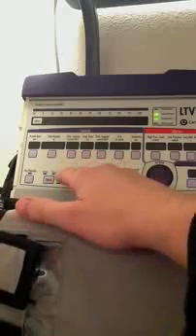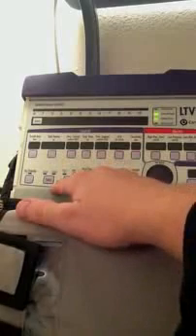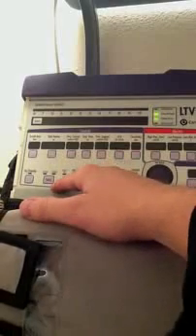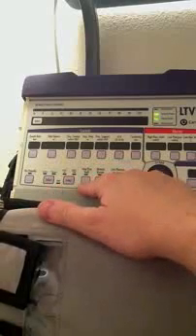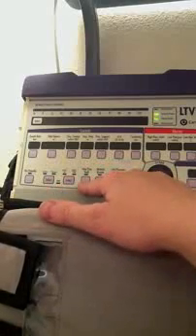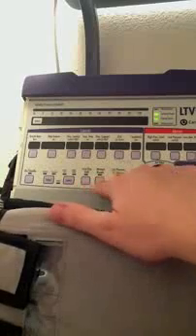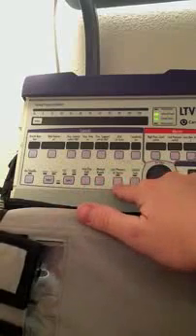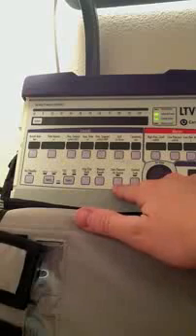This selects between assist control, SIMV/CPAP, and then NIPPV, or non-invasive positive pressure ventilation, which is basically analogous to BiPAP. This is my inspiratory or expiratory hold button. This allows me to check for auto PEEP and check the plateau pressure. This is to give a manual breath. This is the low pressure O2 source. If I have a setup, I can bleed in low pressure oxygen to increase or decrease my FiO2.